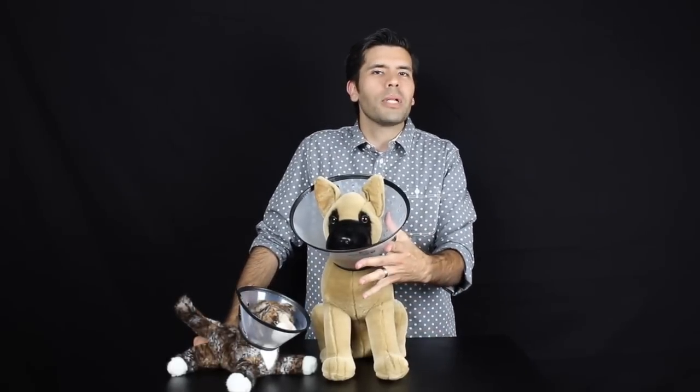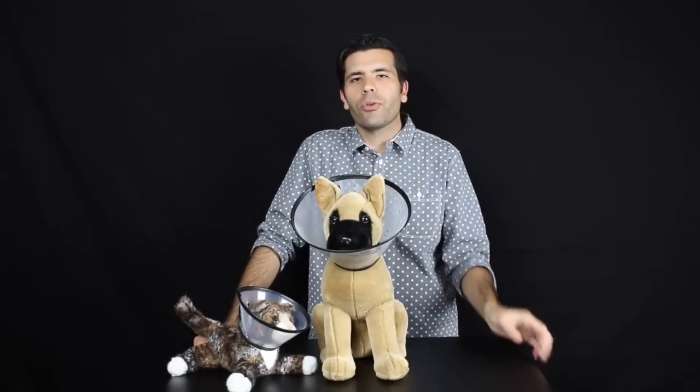Crystal clear plastic. It's a very, very strong, great all-purpose general collar. So enjoy it. It's the safety collar.